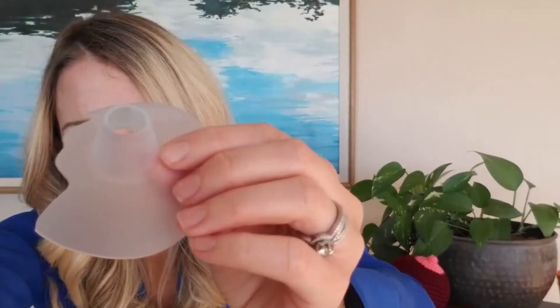Those are the reasons that cutting a nipple shield is bad. When you compare that to our Back to Mom nipple shields — which are basically the idea of cutting a nipple shield, but they are specially molded and formed — the edges are nice and smooth. They're rounded. They're not going to cause the baby any friction or rubbing. All of our shields were specifically designed with the idea of making sure there's no discomfort for the baby.